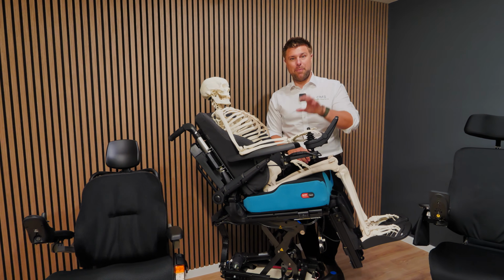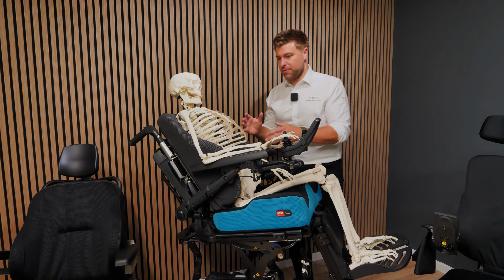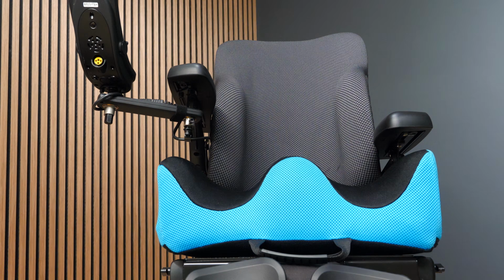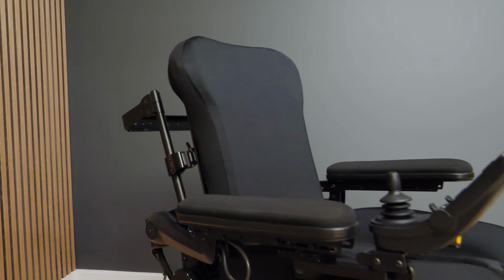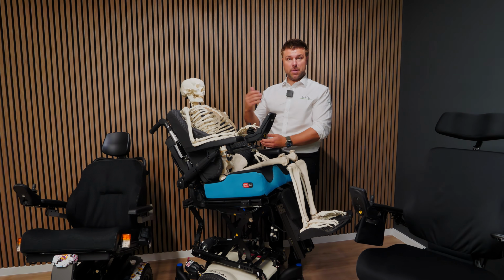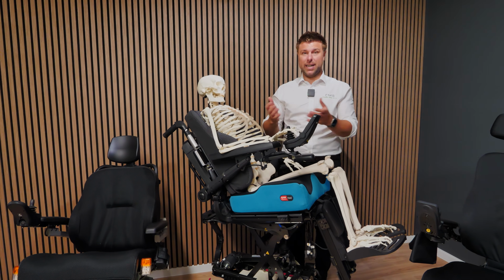Directly linked to backrest angle, or the effects of a backrest position, is the provision of the backrest. Now, this is a relatively standard backrest that I'm showing you that's provided by the manufacturer. However, a poorly prescribed backrest, whether it be too wide, too deep, too narrow, or where the actual lateral supports are, all have an effect on how you sit in the chair, how well the backrest is supporting and immersing you, and where you're getting the correct type of lateral stability.